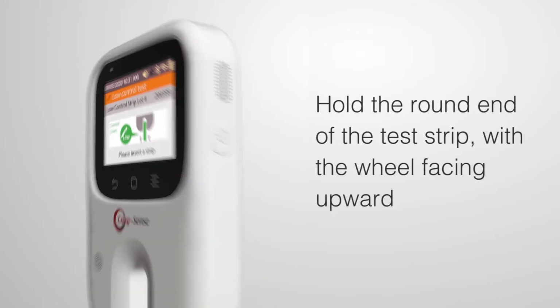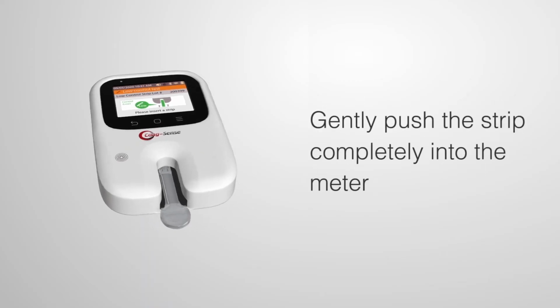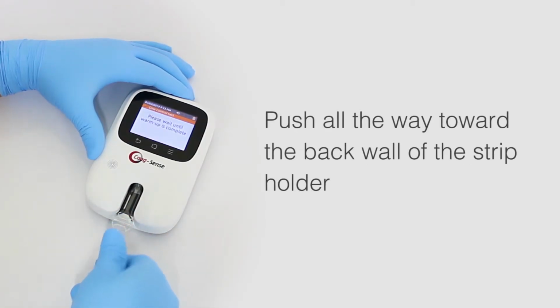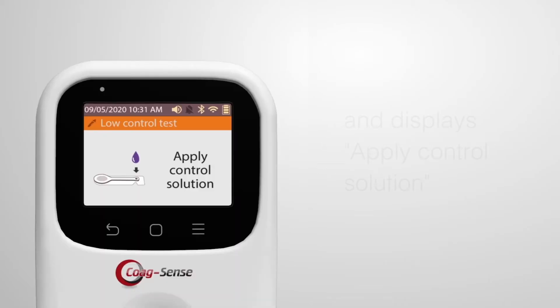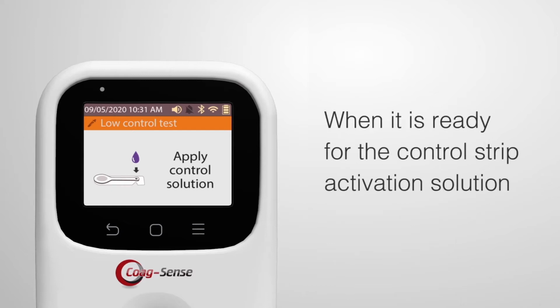Hold the round end of the test strip with the wheel facing upward. Gently push the strip completely into the meter. The strip fits snugly and should be pushed all the way toward the back wall of the strip holder. The display will show the countdown of time remaining during the warm-up cycle. The meter beeps once and displays Apply Control Solution when it is ready for the control strip activation solution.